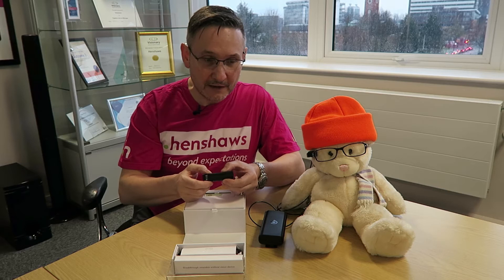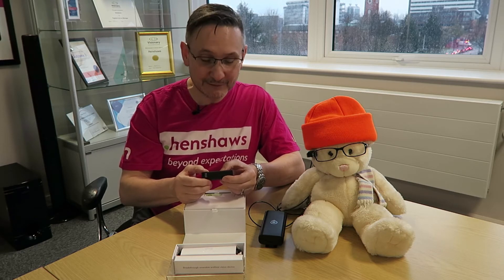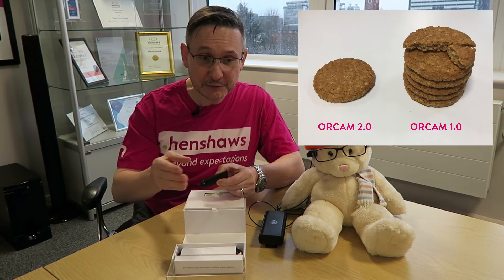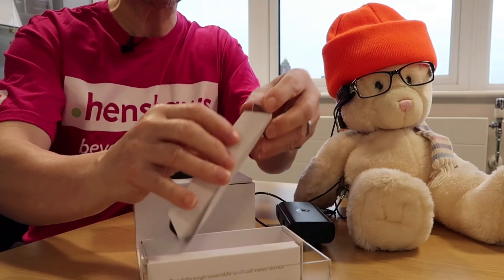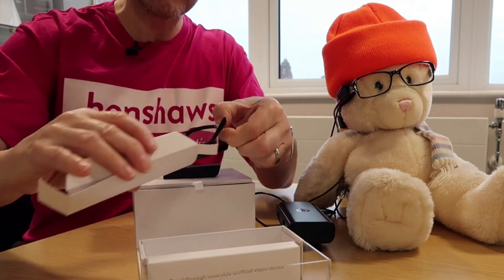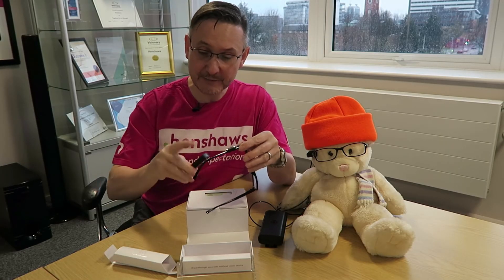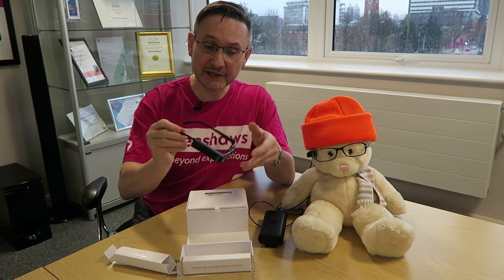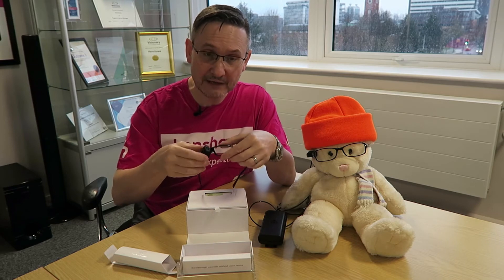That's about a seventh of the weight — or, as someone else put it, the difference between one hobnob and several hobnobs. I'm still getting over how they've shrunk it. I can't imagine what it'll look like in another two years. It just clips on — no messing around — it's on a magnet. It's got LEDs as well.